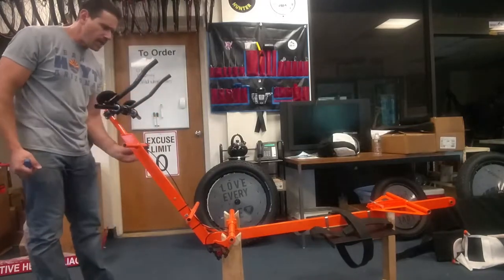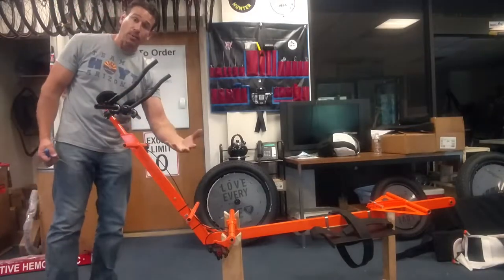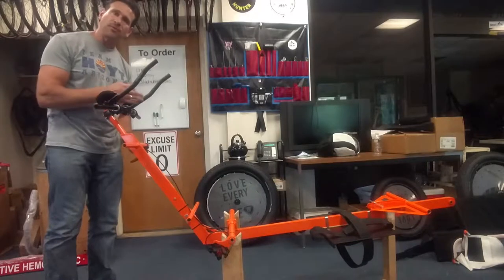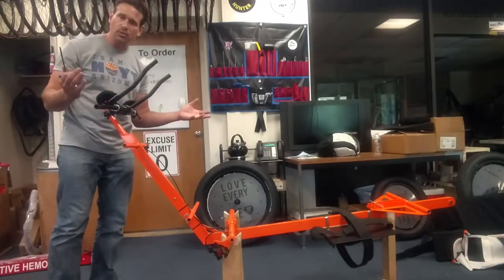It's perfect. It's a clicking mechanism — one, two, three, four. It acts as a drag brake. So if you're going down hills, you can do a couple clicks and feel resistance in the wheel, and you can roll down the hill at a nice controlled speed.